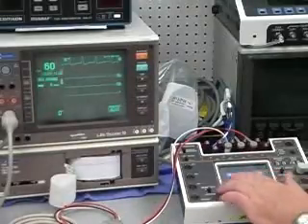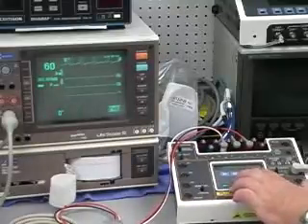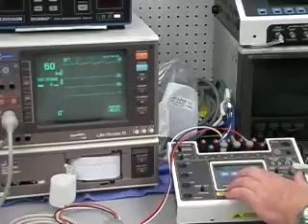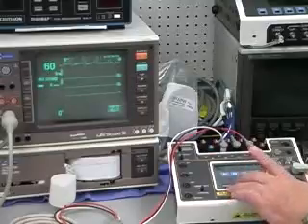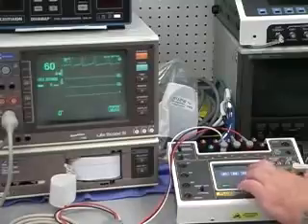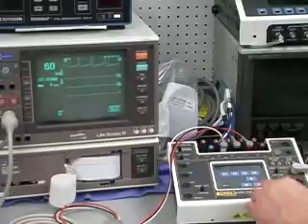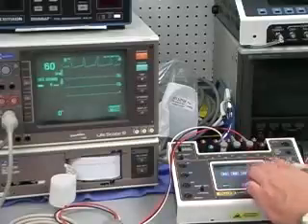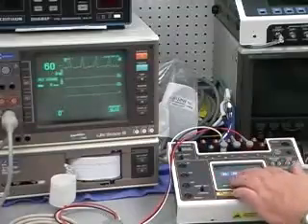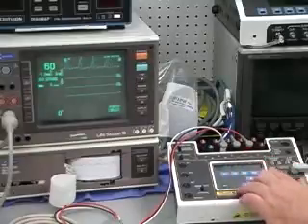And again, under ECG, you've got the arrhythmia capability. With it, we don't have as many pre-programmed arrhythmias as what's in the MPS 450. But what we do have is a user programmable mode where you can go in and program custom activity for your PVCs. So very similar to the MPS 450. Supraventricular, the top part of the heart, premature beats, then ventricular series of arrhythmias, and then conduction defects.